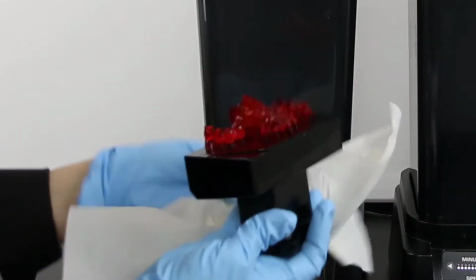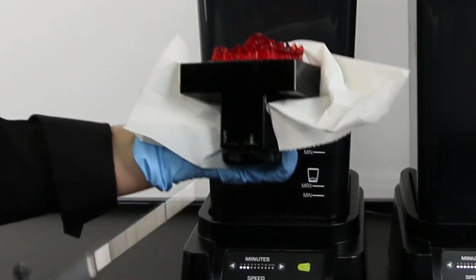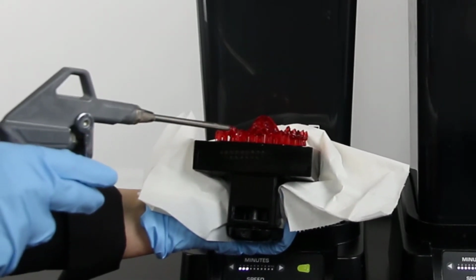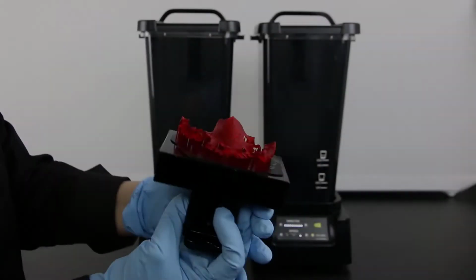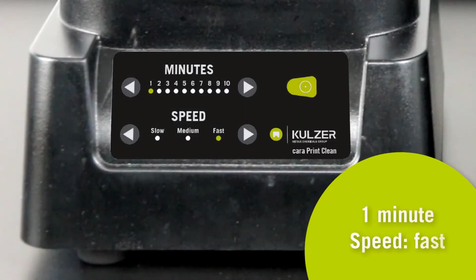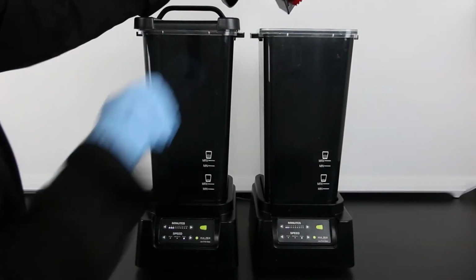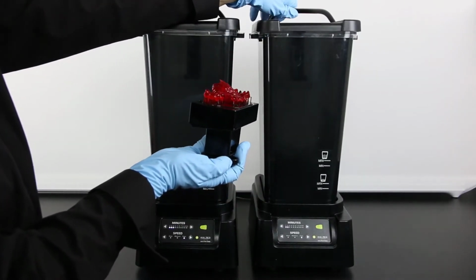Between the two cleaning steps the object is thoroughly blown out with compressed air. Make sure that you use a splash guard, otherwise your surroundings may become contaminated. Then put the objects into the second cleaning bath. The second cleaning time is also 1 minute with the speed fast. After the second cleaning step the object is blown dry again with compressed air.